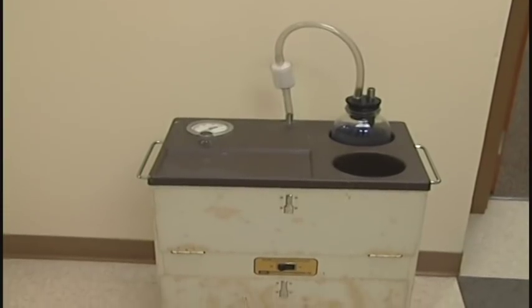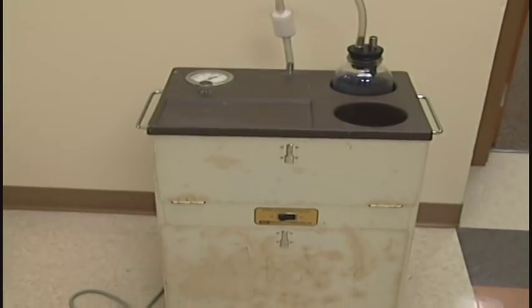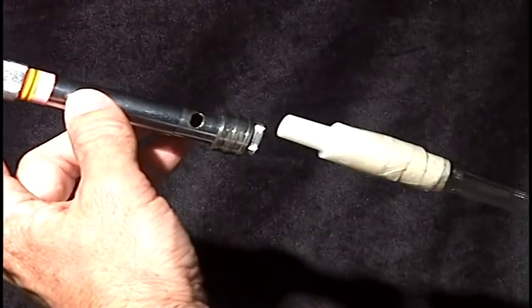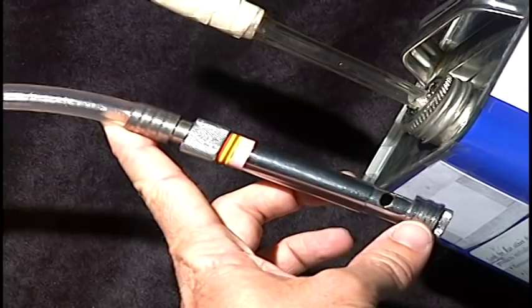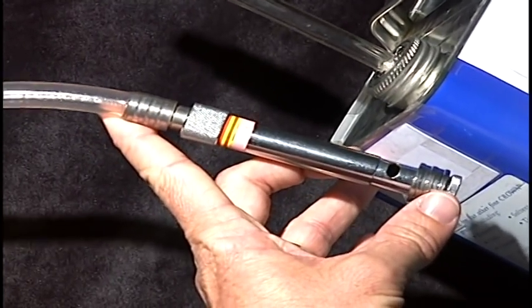This tube is connected over to the suction machine, which you can probably hear in the background. What I'm going to do is I'm going to place the suction tubing on top of the can and you'll hear a little crinkling sound from the steel, but that's not even full suction.